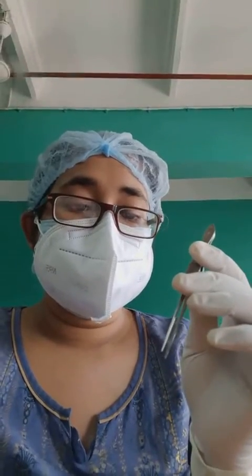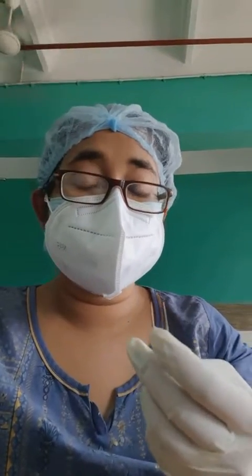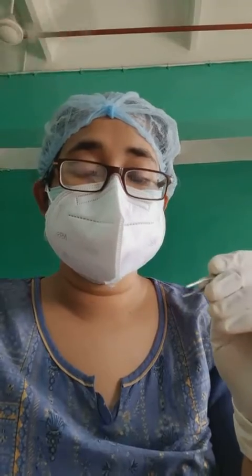Another instrument I forgot to mention: this is known as tissue forceps. We also have other forceps like Saint Martin's, but this is a larger tooth-tipped forceps. You can use it to hold tough tissues such as skin. The skin needs to be held in ophthalmology mainly in dacryocystorhinostomy cases. It has large teeth at the end.